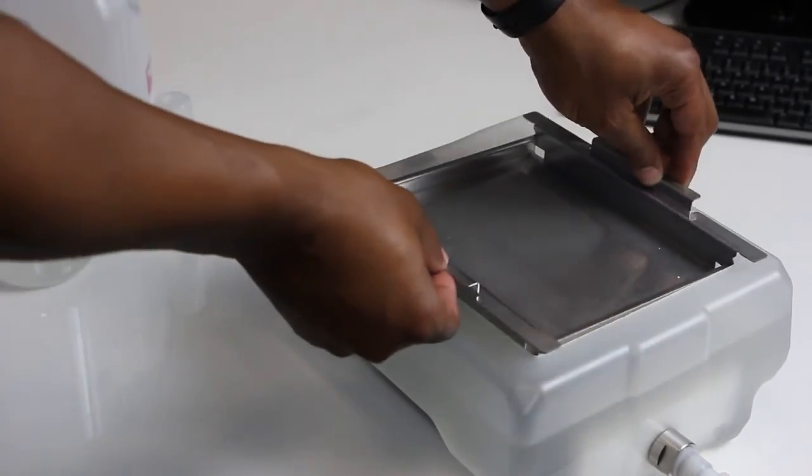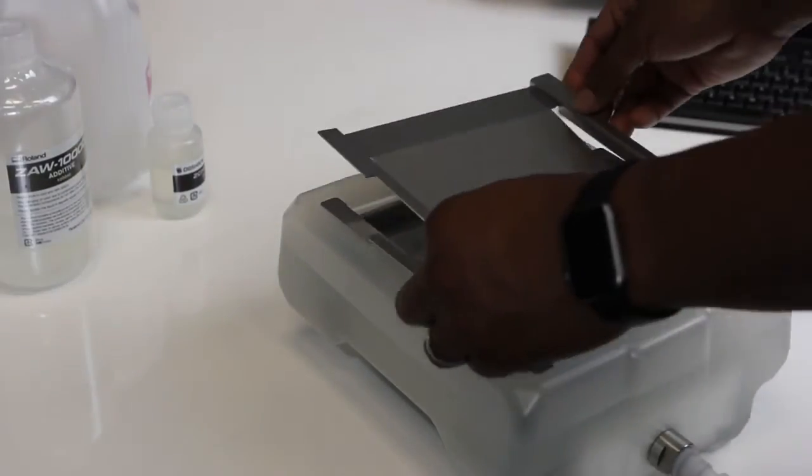Place the tray into the coolant tank, then place the tray lid into the tray.